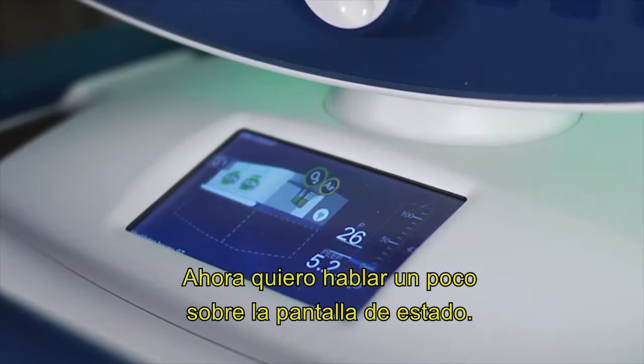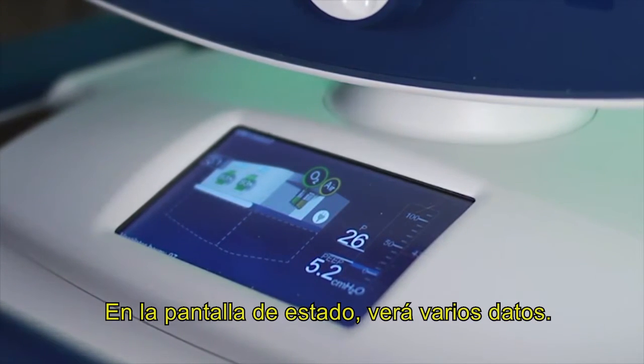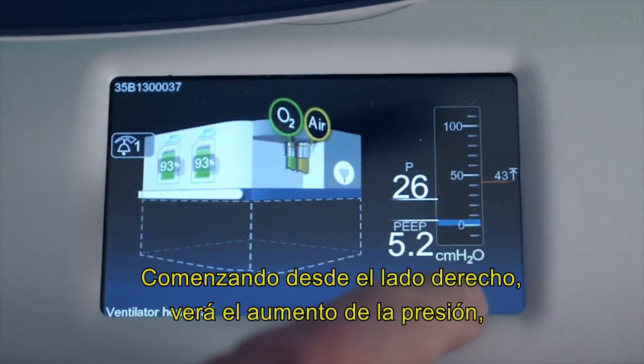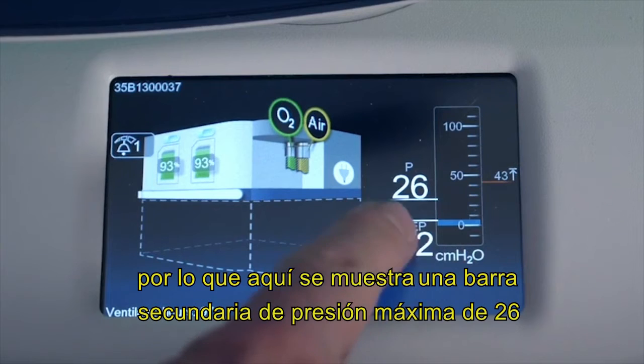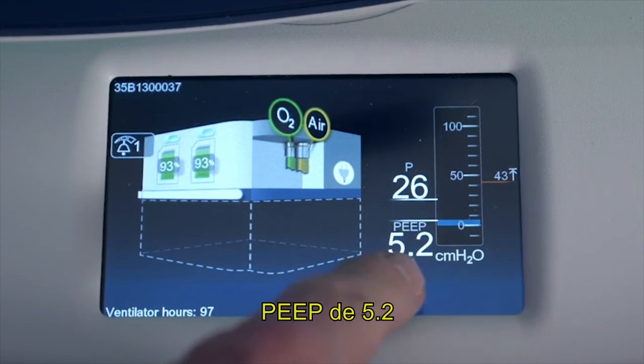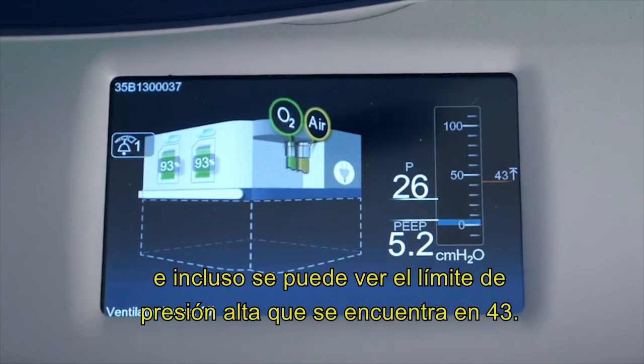Now I want to talk a little bit about the status display. On the status display, you'll see a number of pieces of information. Starting from the right-hand side, you'll see basically the rise in pressure. And so here is a secondary display of peak pressure of 26, PEEP of 5.2, and you can even see the high pressure limit set over there at 43.